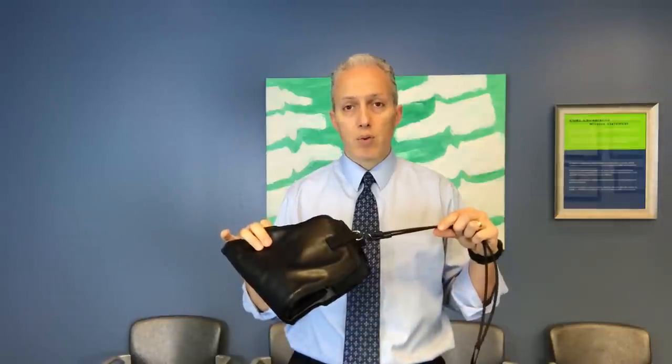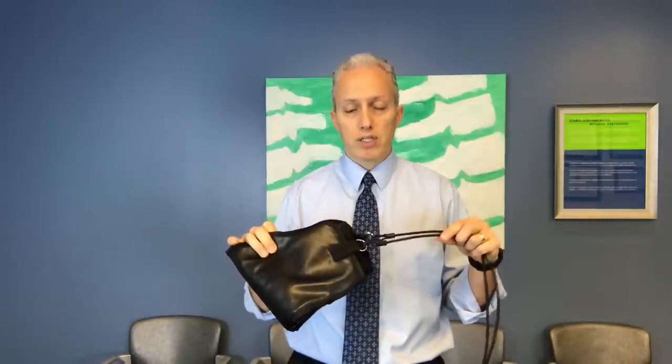We have other devices that we'll continue to review — there's one that separates this way, and others that will go over the door. We're going to continue to find the right traction devices, and you'll have our latest recommendations in the notes of the video. Unfortunately, I think this one is not going to work and is not going to be worth the $20 spent. If you have a different result or think I'm wrong, please reply in the comments and let me know how this is working for you.